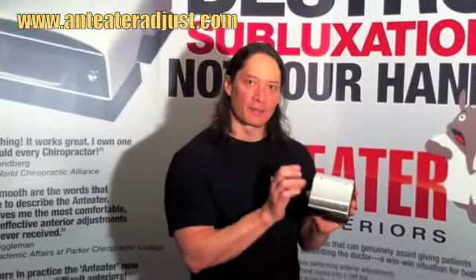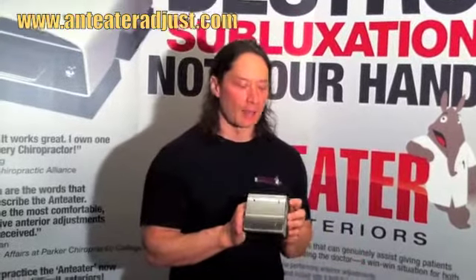What we didn't realize until we started using a prototype was that along with the protection, something fantastic happened. We noticed that you got instant feedback reverberating through the stainless steel. You can feel and hear the audible coming right through the stainless steel, felt right in your hand the moment you get it. The number one thing doctors say after using these at trade shows is: the reason they were so apprehensive about buying the Anteater or using any type of anterior device or blocks with patients was because there's no feedback. But the wonderful thing about the Anteater — that we didn't even realize was going to happen — is that we got instant feedback. Imagine hitting a baseball with a bat and feeling the power reverberate down the bat into your hand at the moment it hits. The same is true with the Anteater.